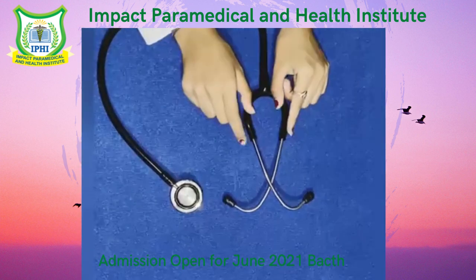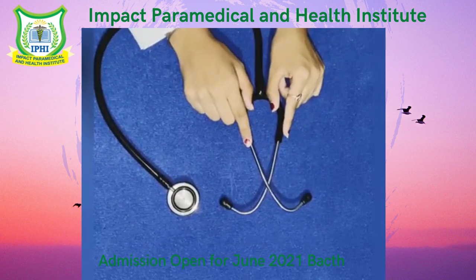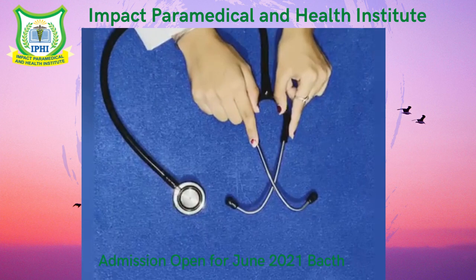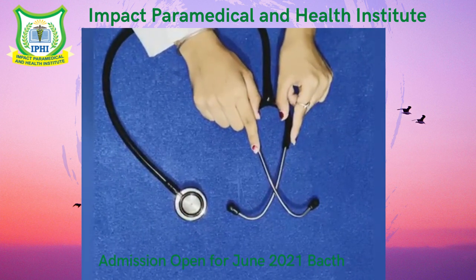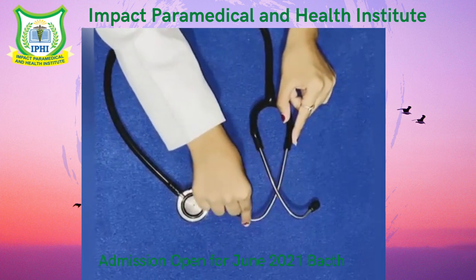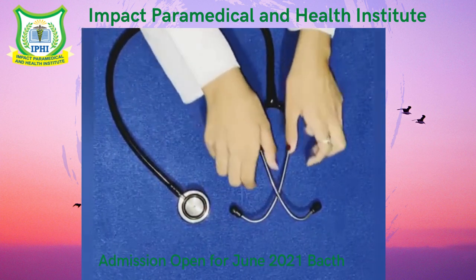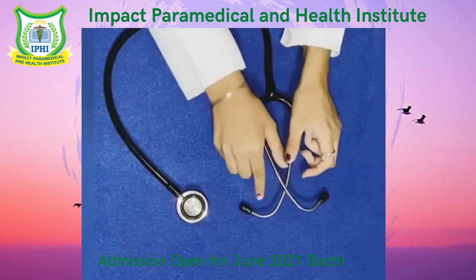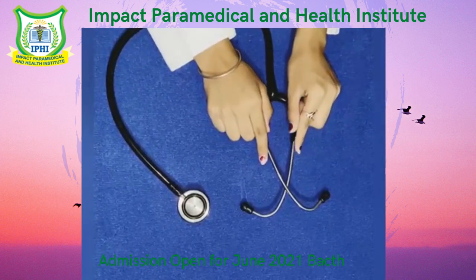Now I will tell you about the usage of the stethoscope from the correct side. People usually may get confused between the correct and the incorrect side. The ear tips are pointing toward the ground on one end and elevated on the other, so you will know to take it like this and put it in your ears. This is the correct way of using a stethoscope.